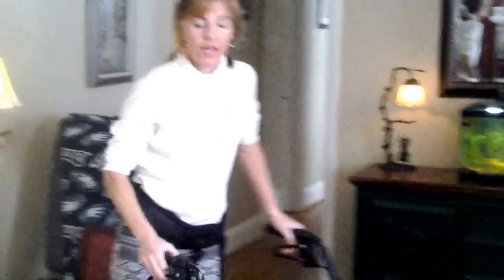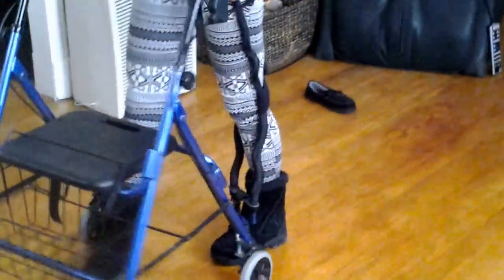And fasten it around like that, so when you stand up it should be hitting you right in the back of your knee. Now, because I have a dizziness problem I need to walk with a walker so I don't fall over. But watch how this works — I've got no problems with my hip flexor.